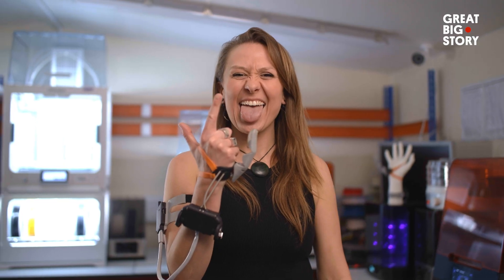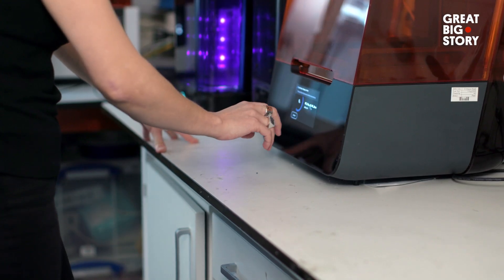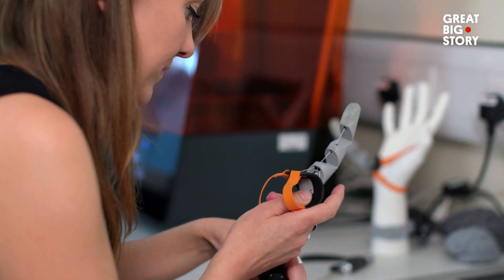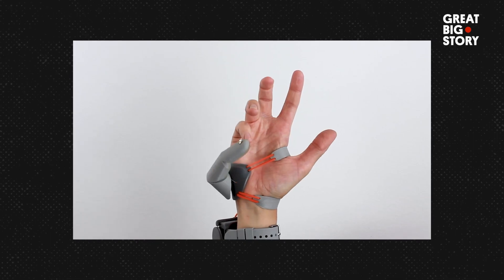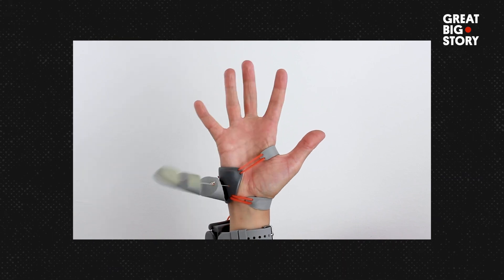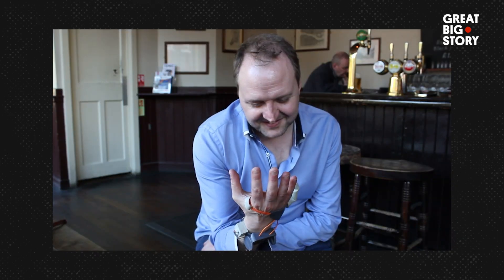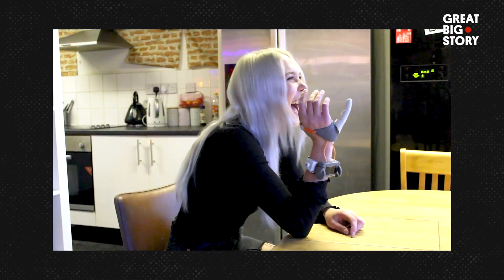Dani is a rock star to me — she combines wonderful creativity with practicality, which is a very complex combination to achieve. I don't think I'd be doing this if I only collaborated with other designers. I'm collaborating with neuroscientists, anthropologists, engineers, and artists, and that's what makes this work so dynamic. I'm constantly surprised I'm still working on the Third Thumb — amazed that something made during my master's degree is now being used for PhDs in neuroscience at Cambridge University.